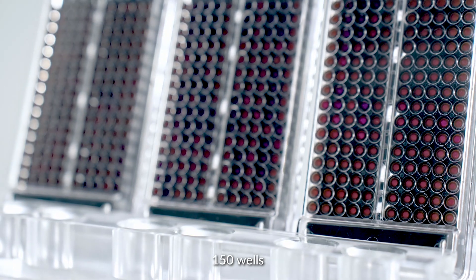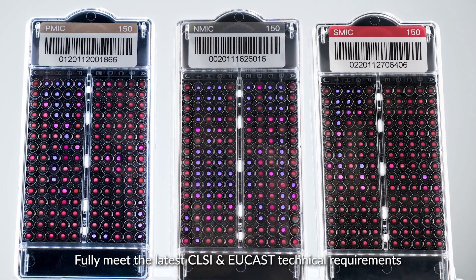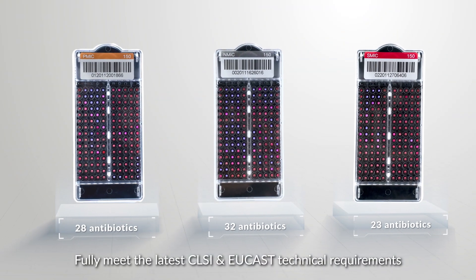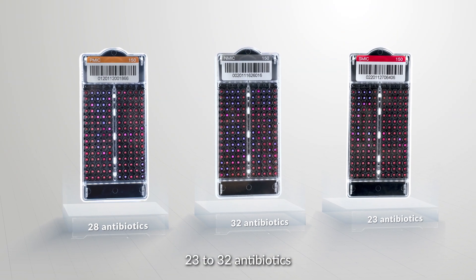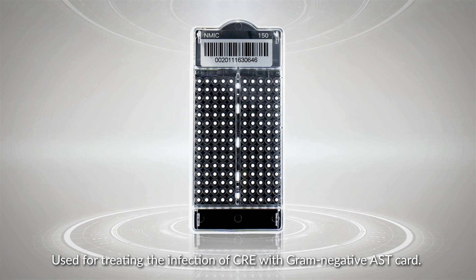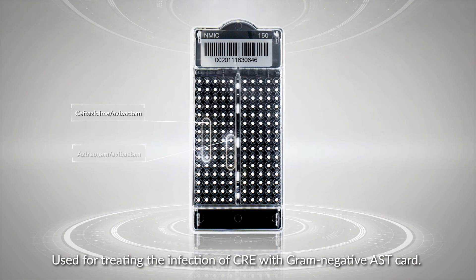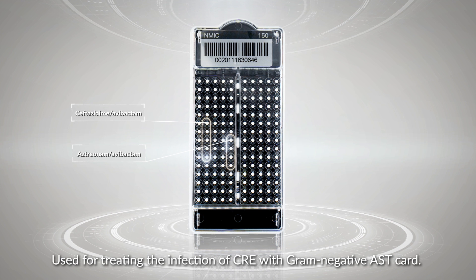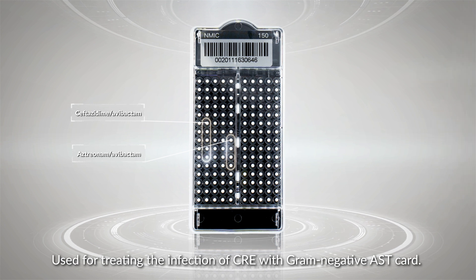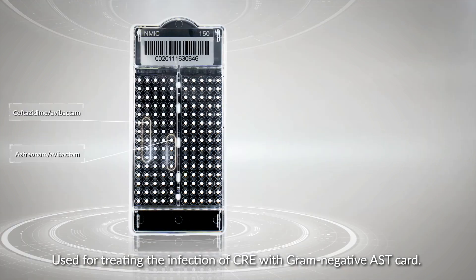There are 150 wells in the AST card. It can fully meet the latest CLSI and EUCAST technical requirements with 23 to 32 antibiotics. Antibiotics such as ceftazidime-avibactam and aztreonam-avibactam have been added into the gram-negative AST card for treating infections of CRE.